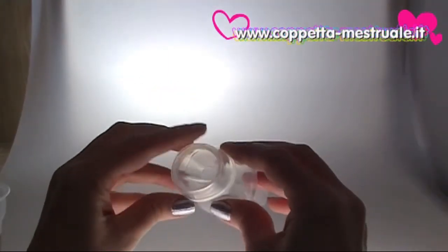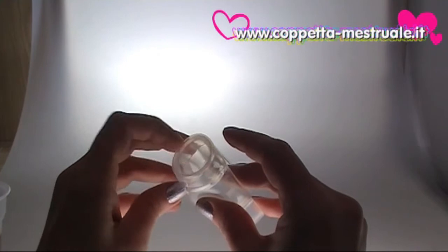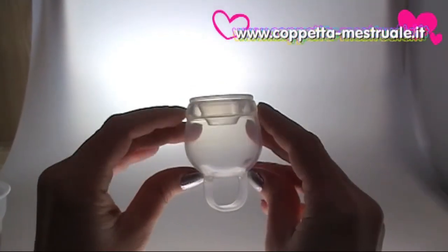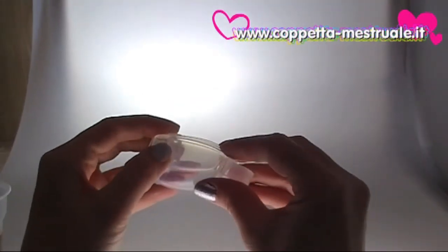The Femicycle is designed not to open up completely when inserted. This will create a suction to draw the menstrual flow inside the cup, which works perfectly. This suction also shortens the duration of the period for the majority of women who use the Femicycle.